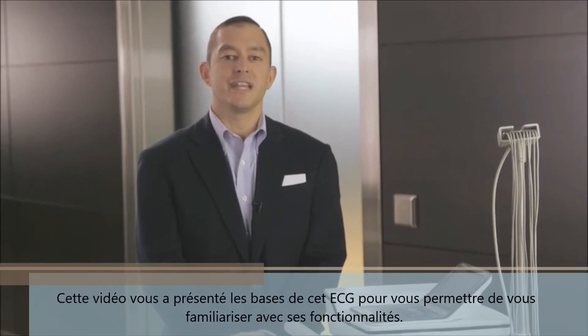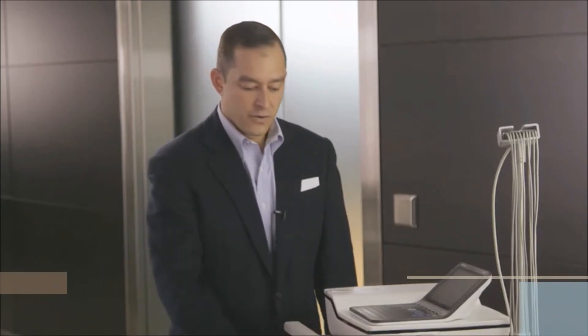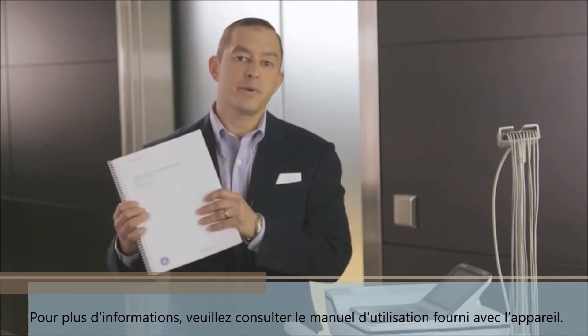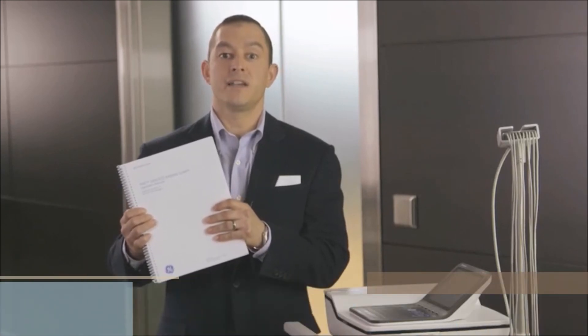Thank you for your interest in the MAC-2000 resting ECG system. This video has been an introduction to get you up and running with your MAC-2000. For more comprehensive instruction, please consult the operator's manual that came with your system prior to utilizing the unit.